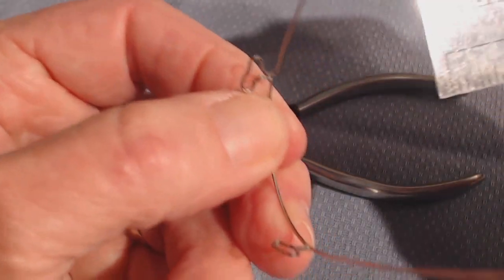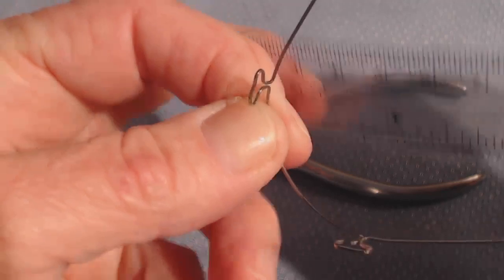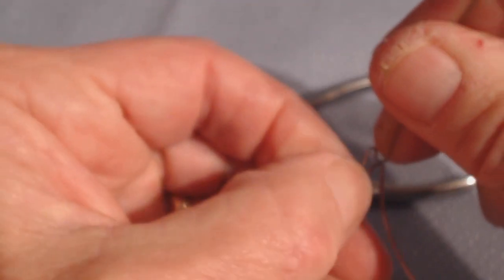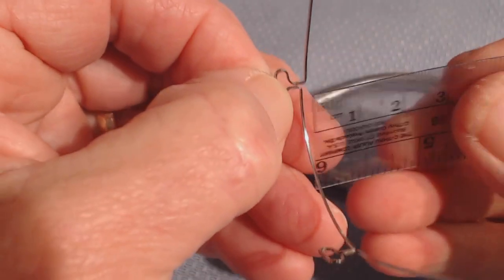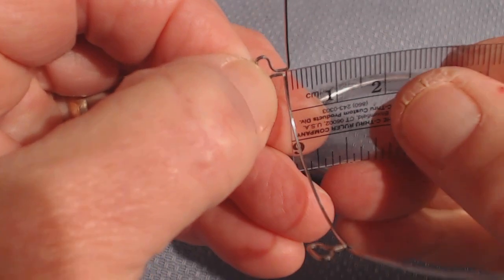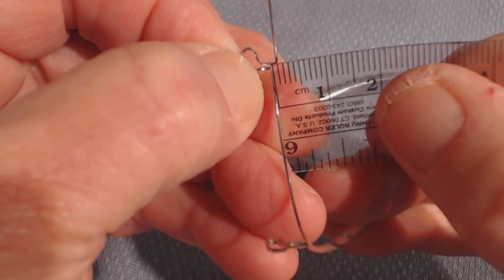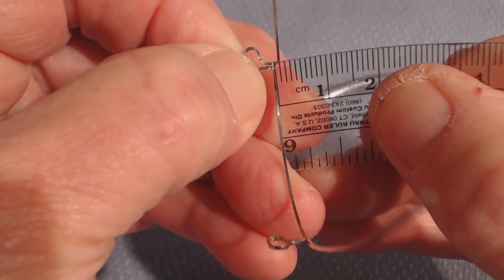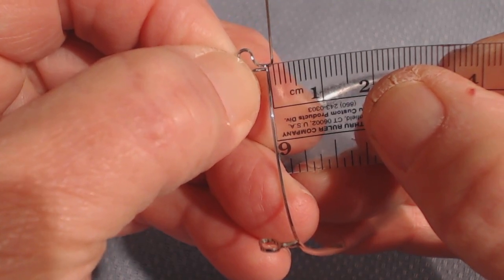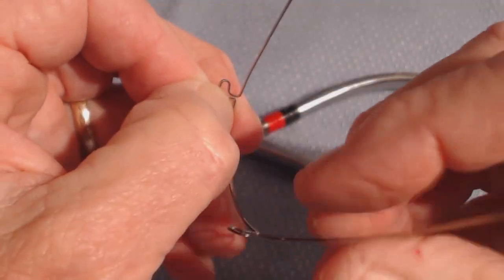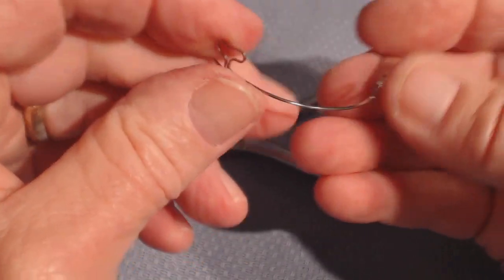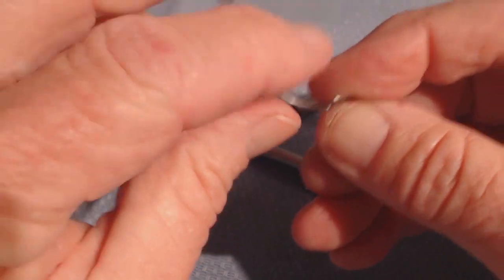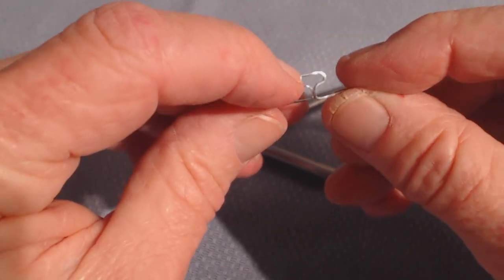Let's see it with the plastic ruler. This should be about one millimeter of intrusion. When I place the ruler on here, you can see that's one millimeter of intrusion. That's perfect. No more than that.